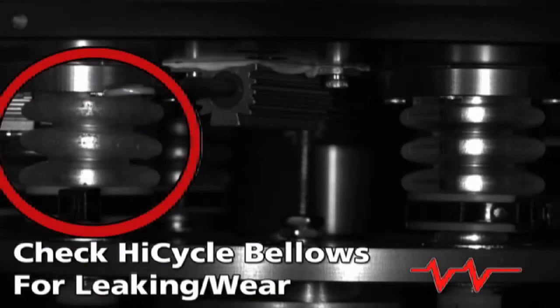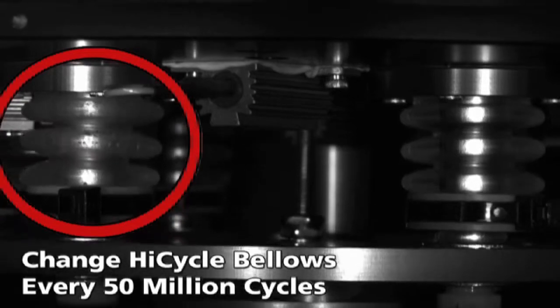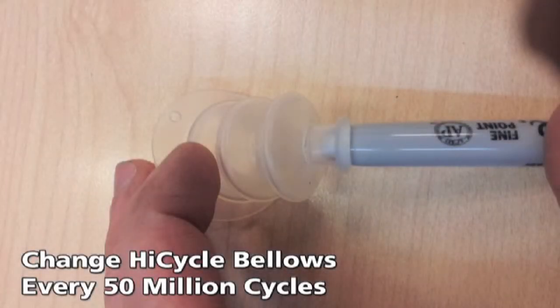It is important to run the HiCycle at low amplitude before tuning the system to dislodge any trapped air bubbles before testing begins. The HiCycle bellows experience stress over time and will fail if they are not regularly changed. It is recommended that the bellows are changed every 50 million cycles to prevent bellows failure during HiCycle operation.